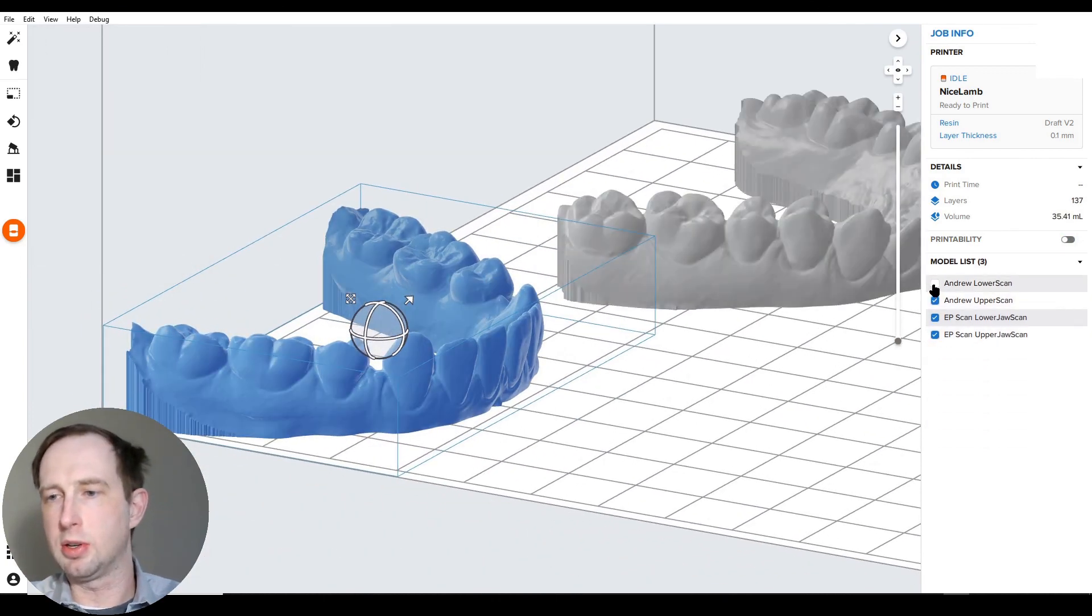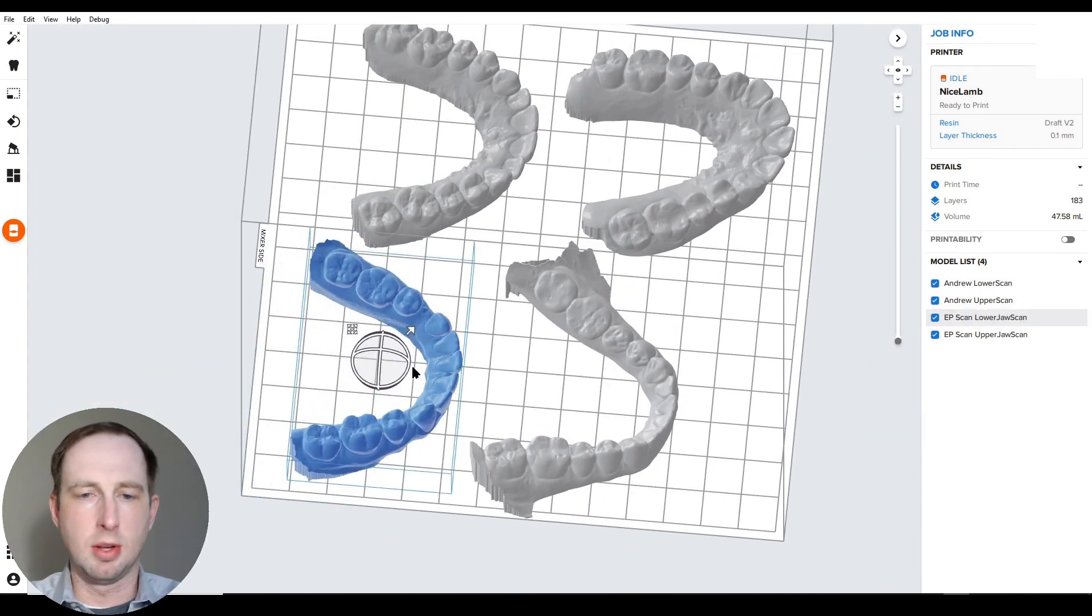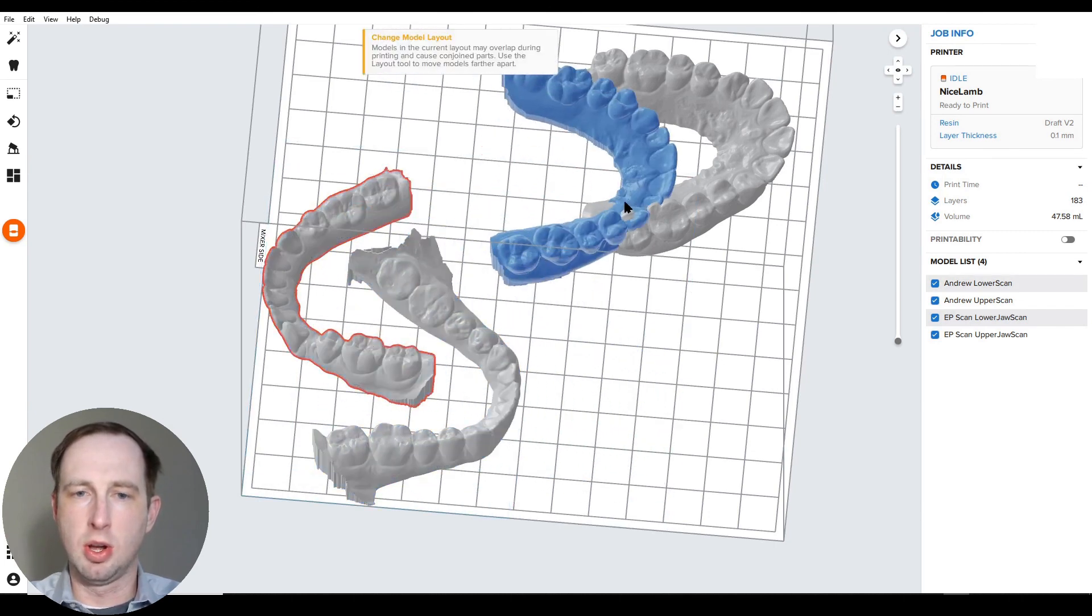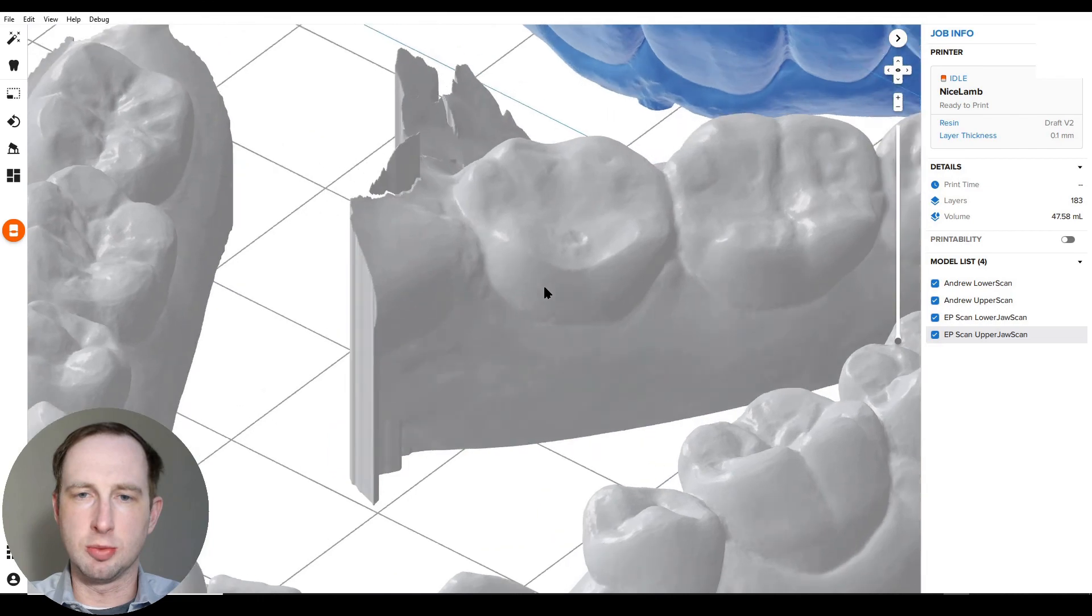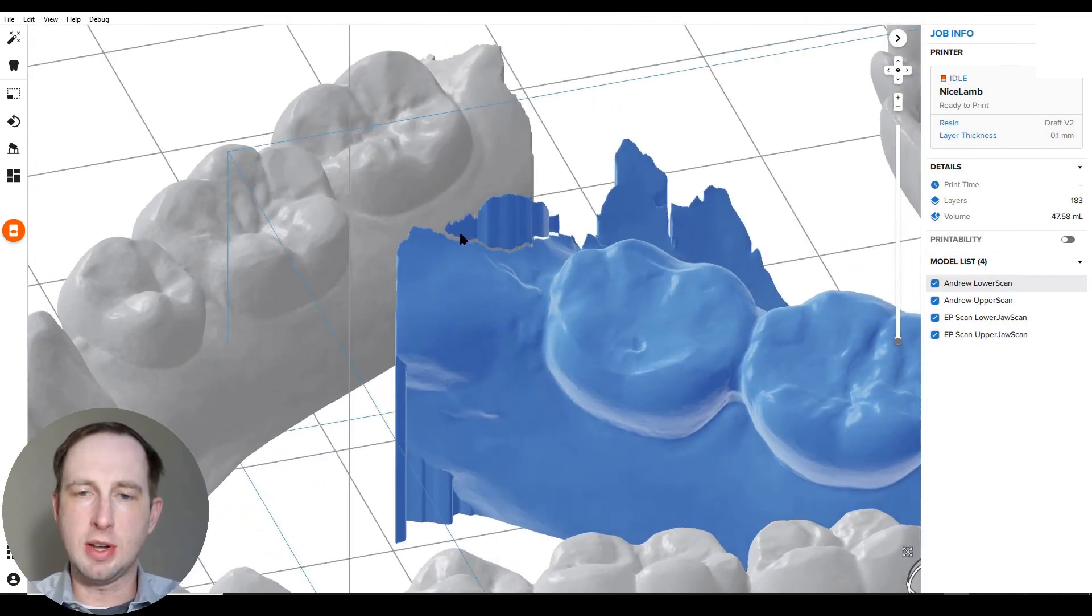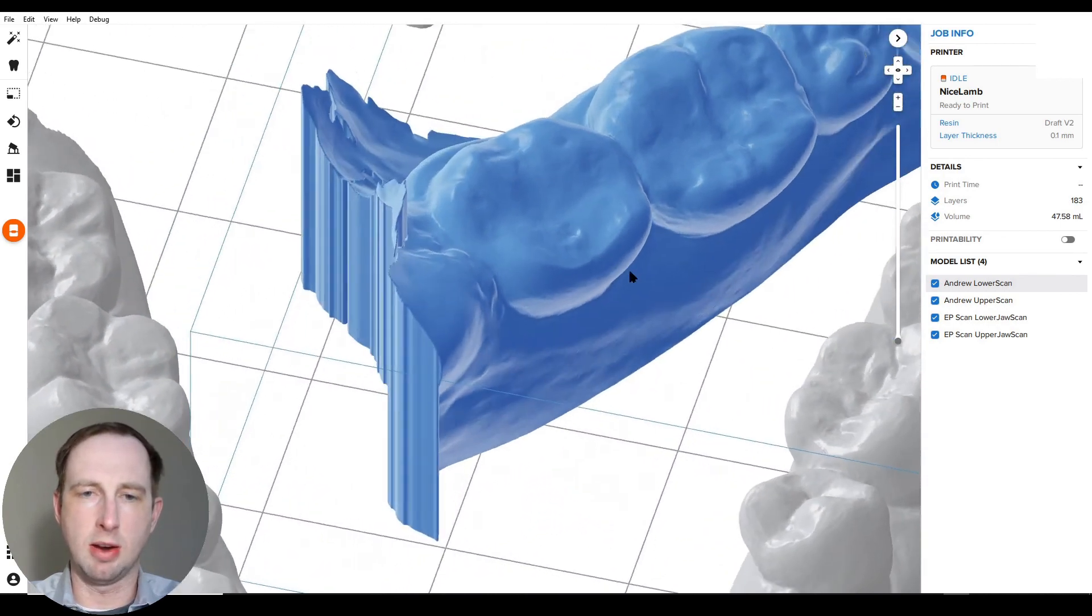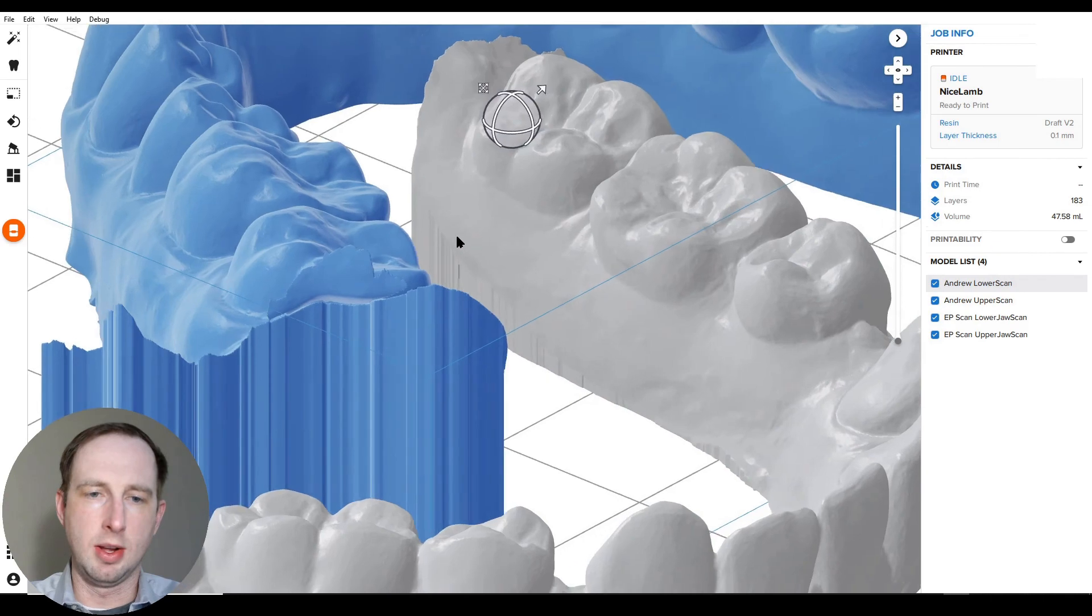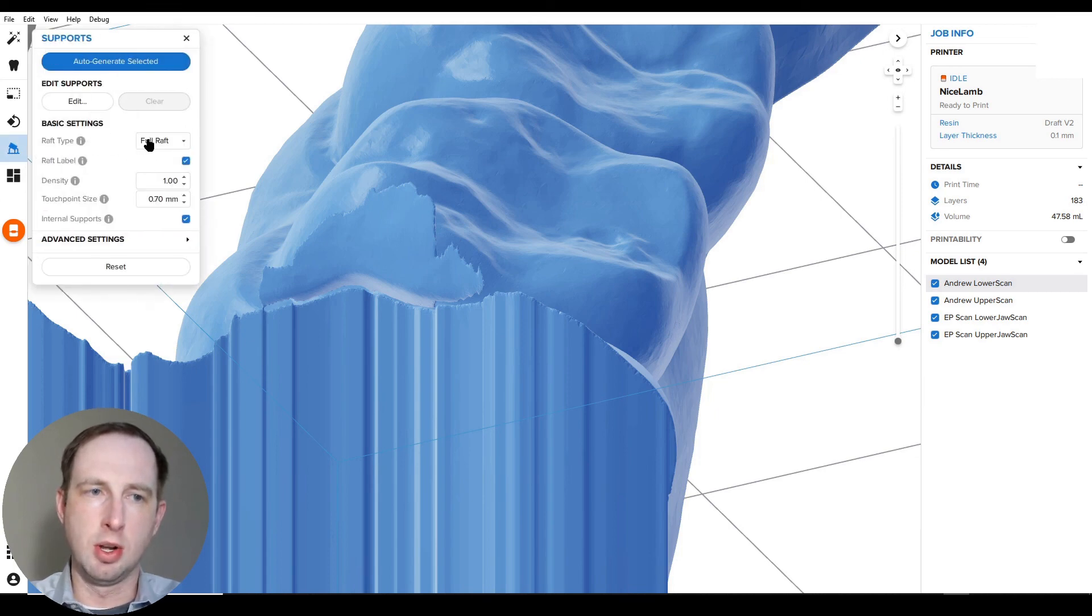I'm going to go back over to the model list here, turn everything back on, and now we're ready to set this up for printing. So just like normal, these models are built, you can print them flat to the build platform like the way I like to do it, or near vertical, or whatever you'd like to do. I did notice something I'll point out here. There's a peculiar flap here. If this ever happens, a slight change in the orientation can help a bunch. It sort of rethinks about it and completely removes it sometimes. And if you did need to just move on, this probably wouldn't really be an issue, maybe.